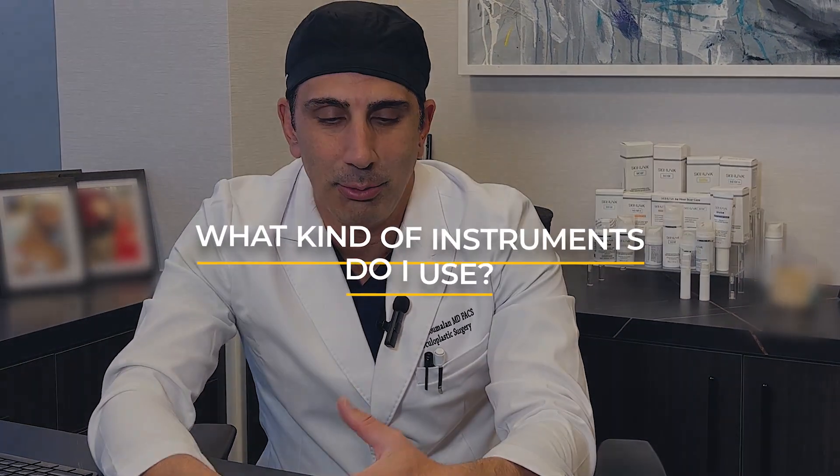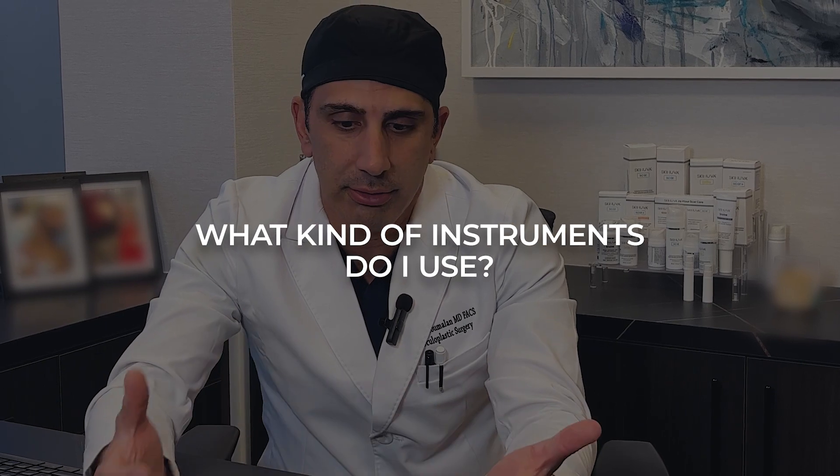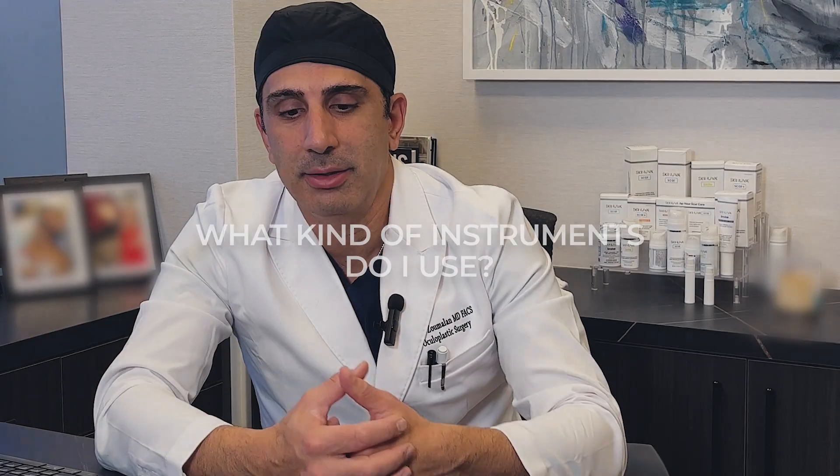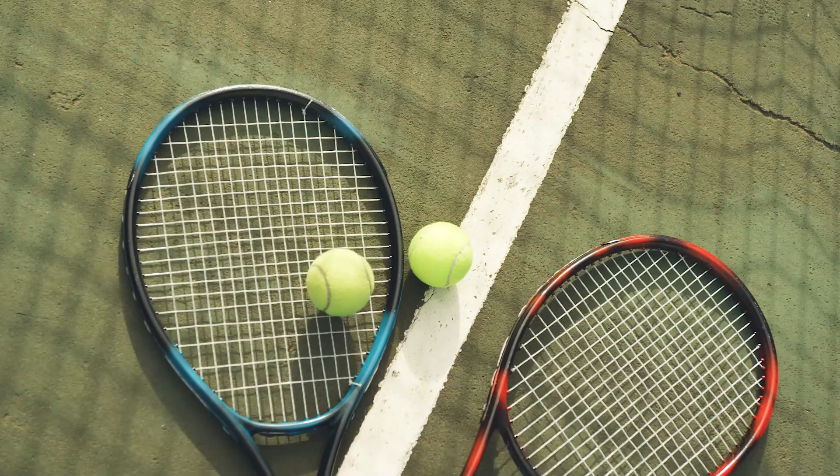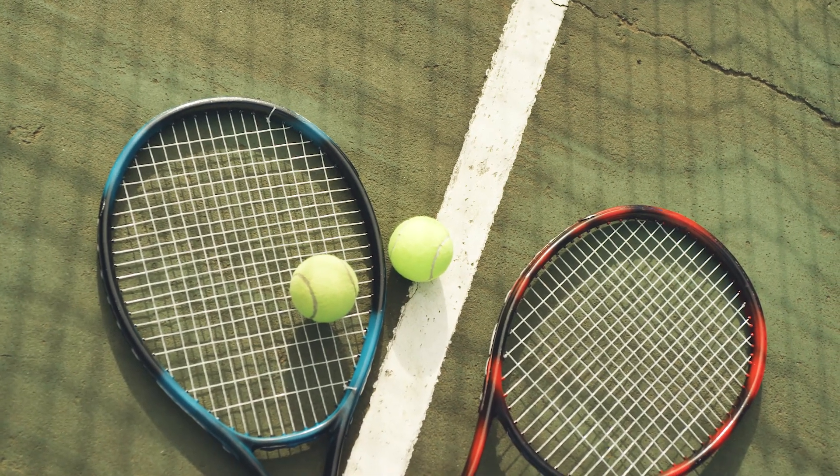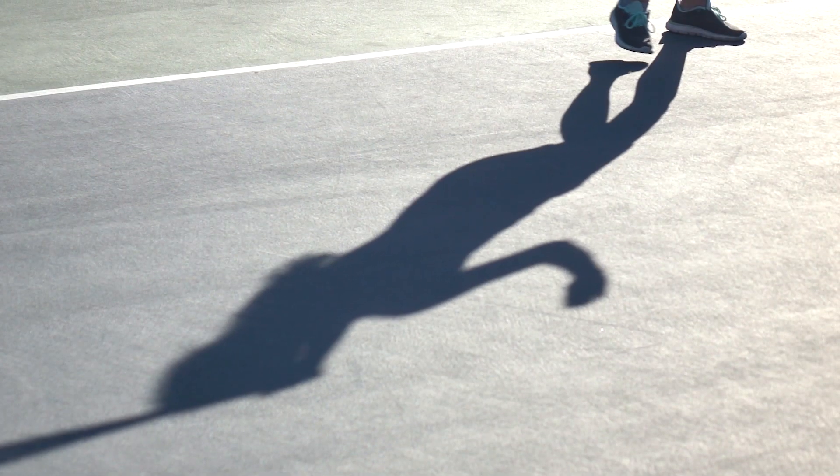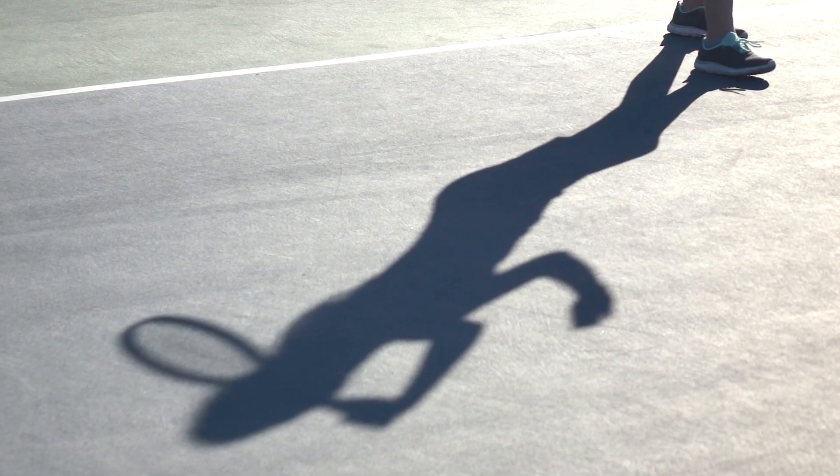This is kind of a fun video because I've never really done this, and a lot of patients ask me what kind of instruments do you use when it comes to your surgery. I'm a tennis player, and just like an athlete, particularly a tennis player, your instruments are so important like your tennis racket, what type you use, the type of strings, the type of balls, the type of shoes. And as a surgeon, it's the same thing.